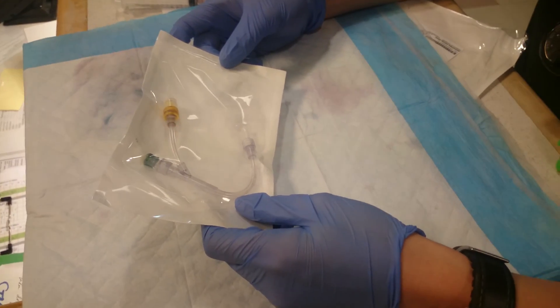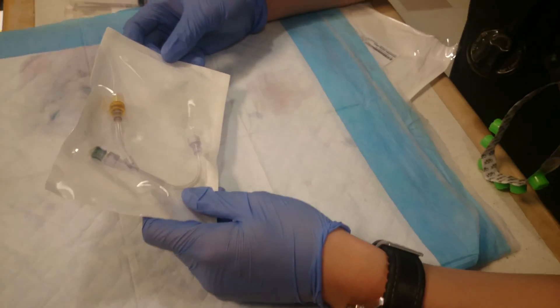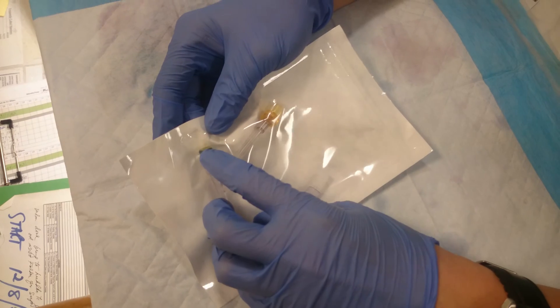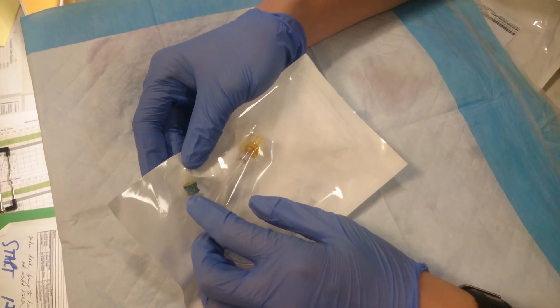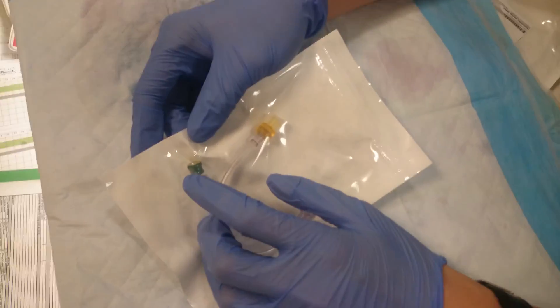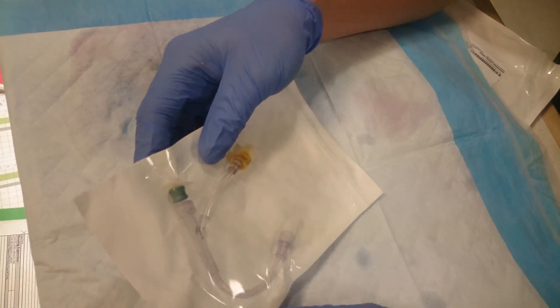Today I'm going to show you how to set up the PCA, specifically how to use the anti-siphon reflux valve. It has a green top and also a yellow anti-siphon filter. For the green one, just think green means go — make sure you hook up your Dilaudid or whatever your PCA medication is to this line, and the normal saline into this line.